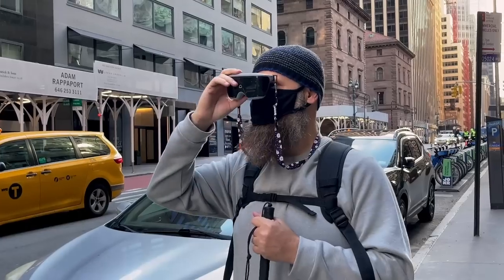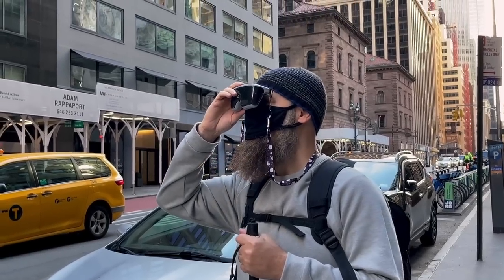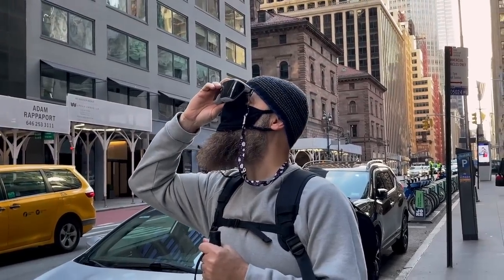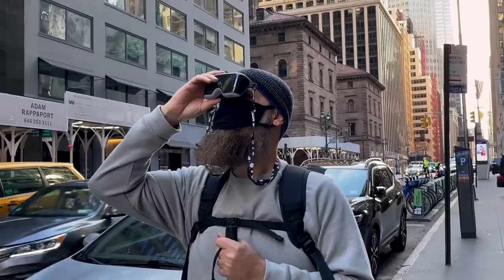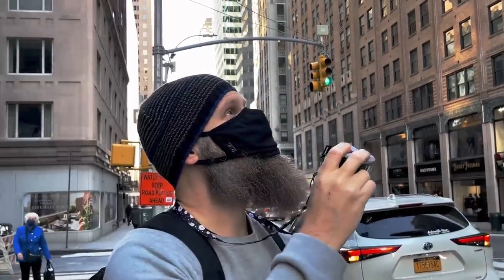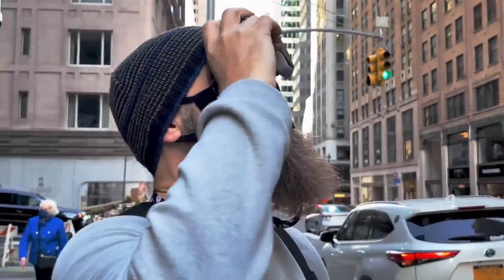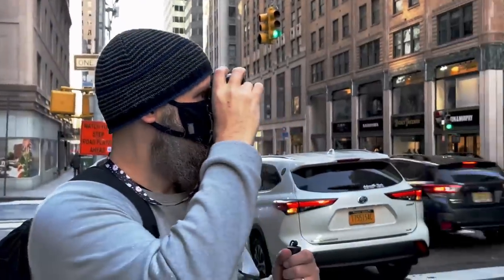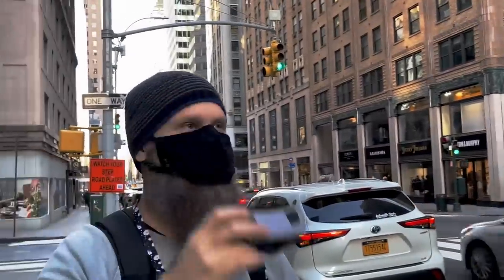The design is pretty straightforward. You've got a little spot for your nose, and there are textured bumps on the bottom where your thumb would naturally rest. Your fingers at the top are in the perfect position to interact with the buttons and zoom in, zoom out, and change the different modes. There's not much to it, which is really what's cool about this — it's simple and easy to use.